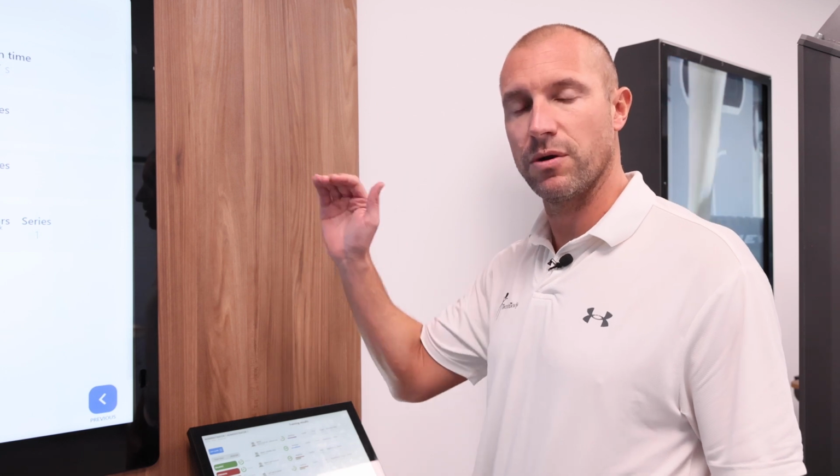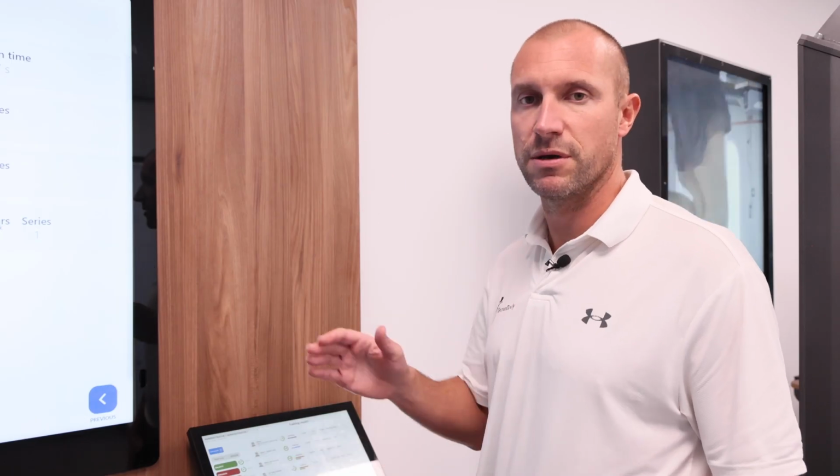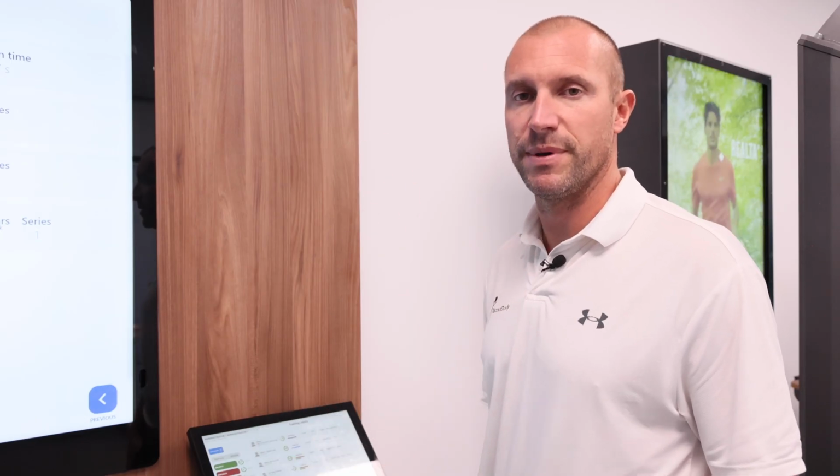After completing the Move exergame, like for all the other exergames and exercises, you can have a full screen display of all the results. Just clicking on Results, the software will show again the list of the exercises that you completed in that day or in a session, splitting the single exercise into the different abilities.